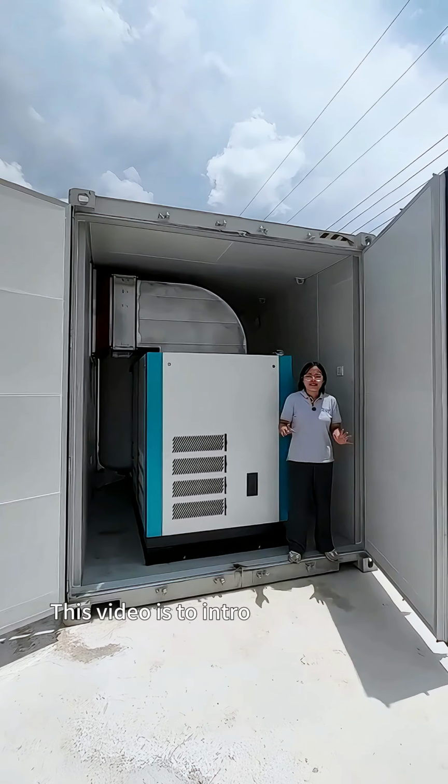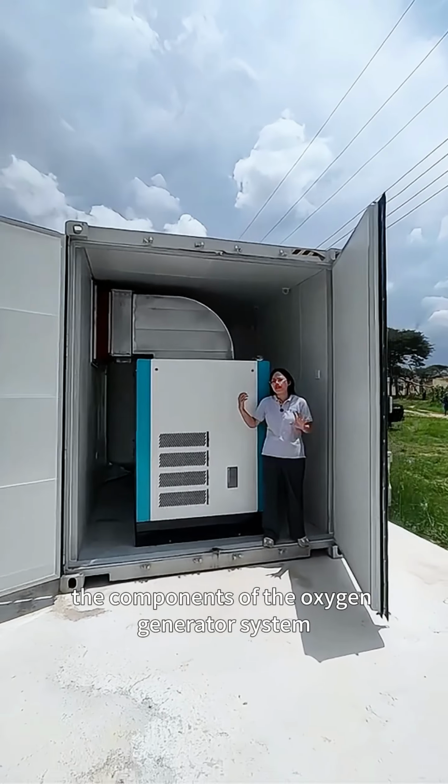This is Nico from Zoomedic. This video is to introduce the detailed components of the oxygen generator system.